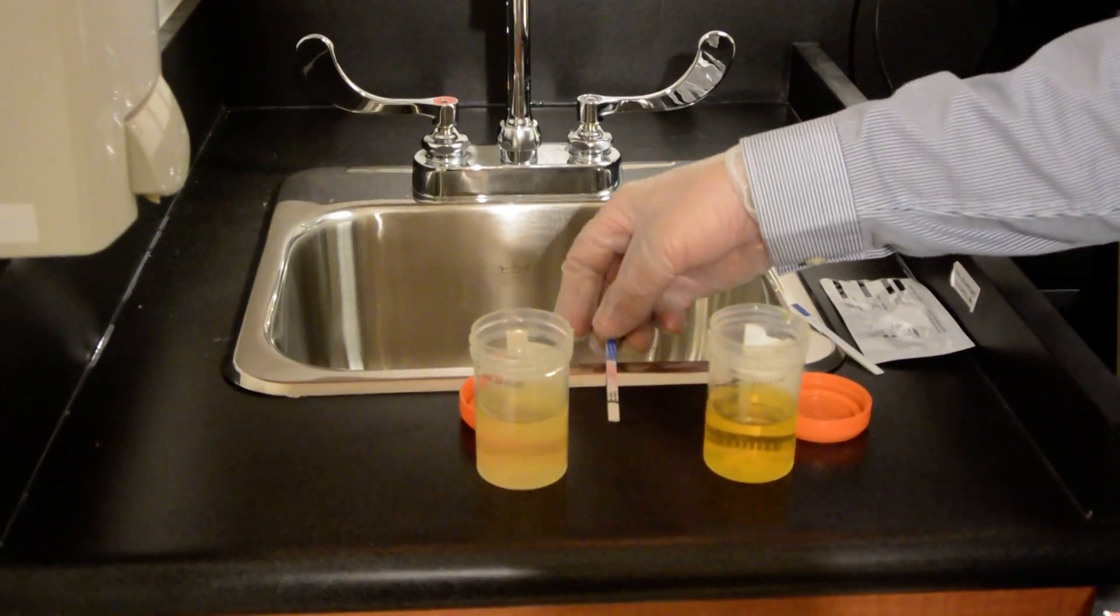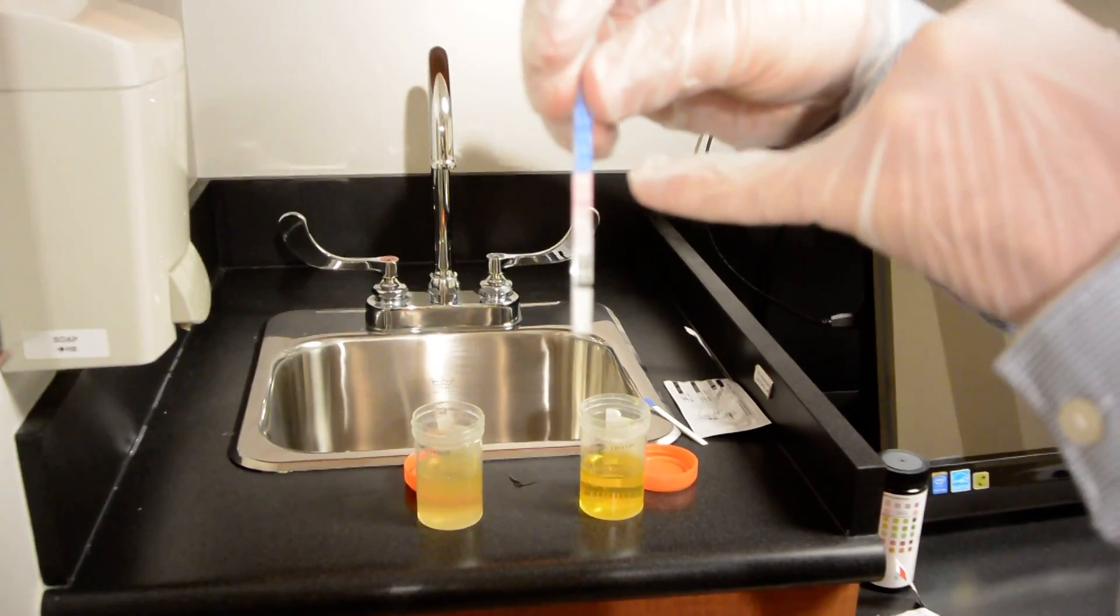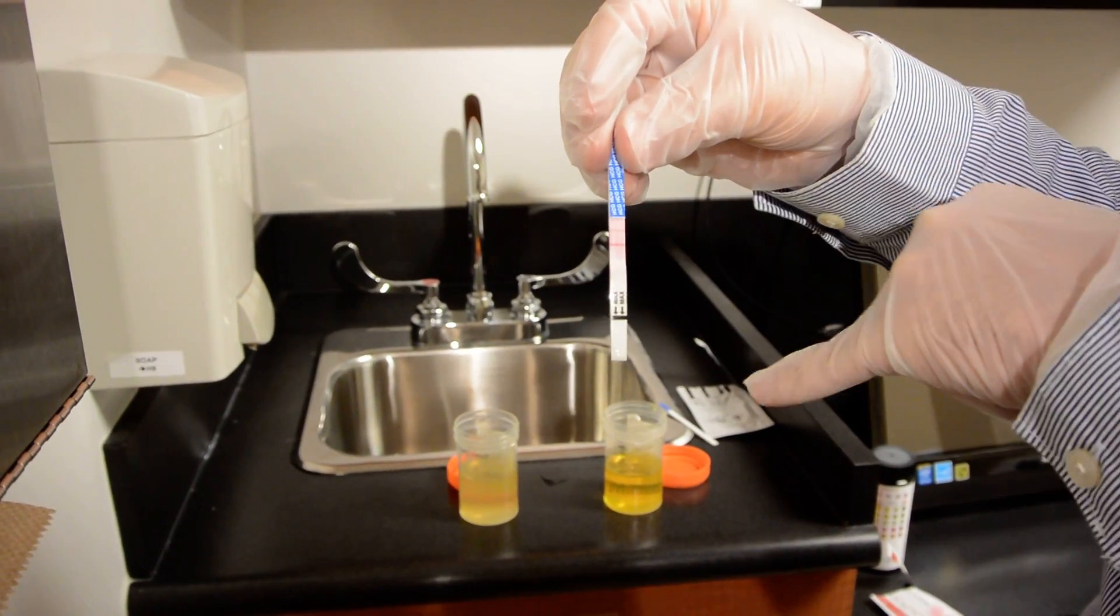On the other hand this is a positive test. As you can see there are two lines present.